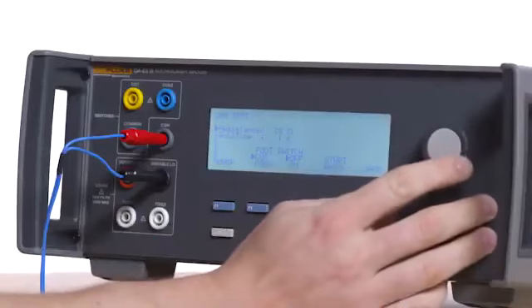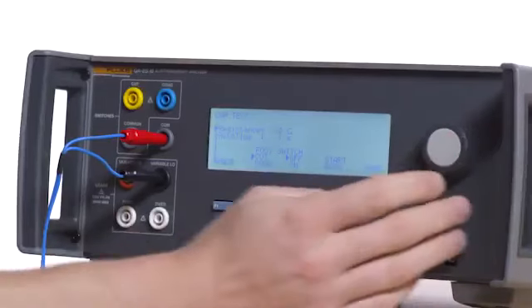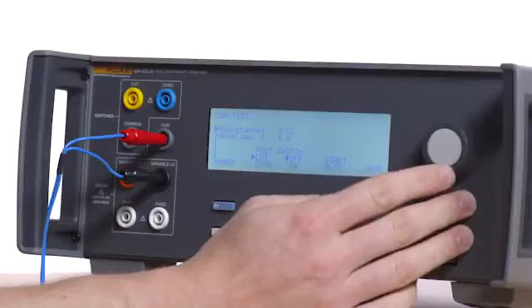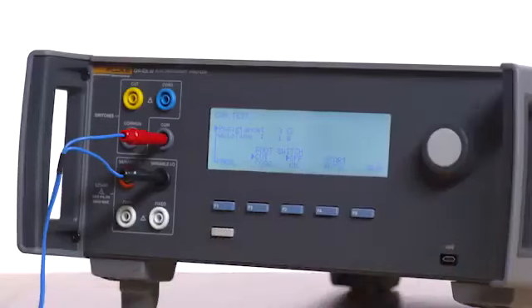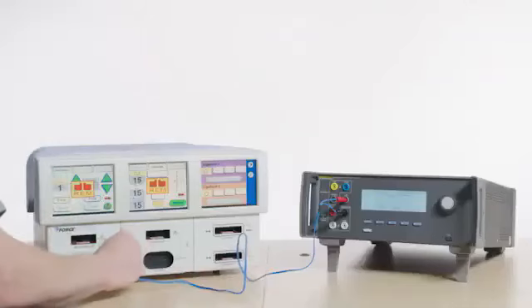Then decrease the resistance in 1 ohm increments until the REM alarm sounds. The alarm should sound before 1 ohm. Press the back button on the QAES 3. Remove all test leads.